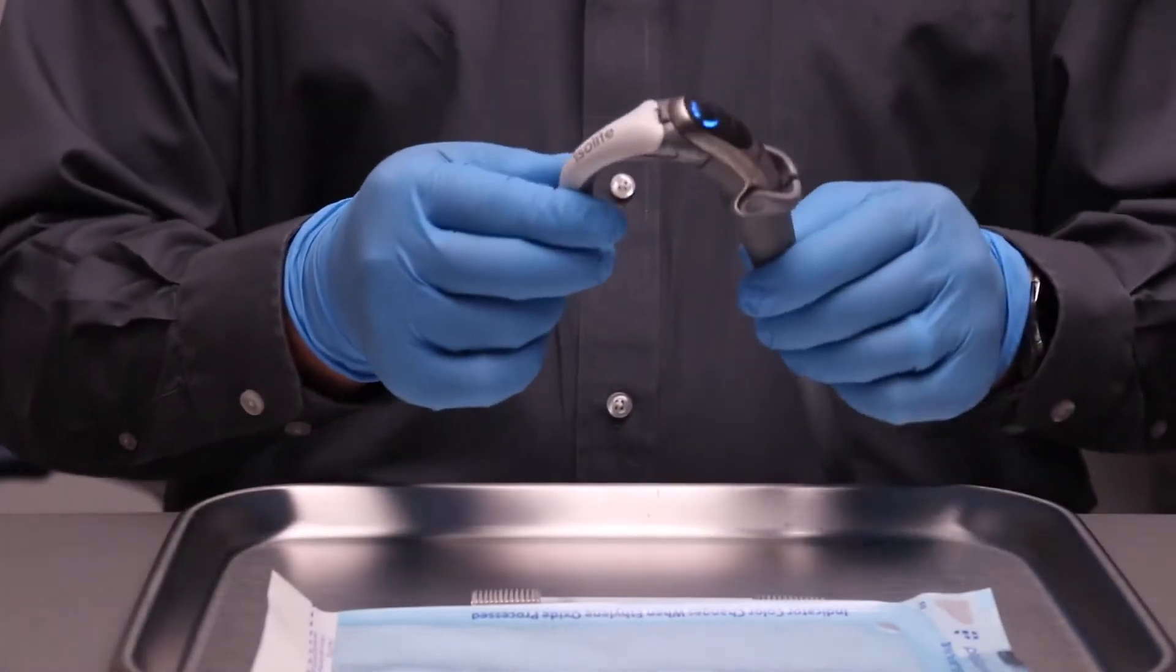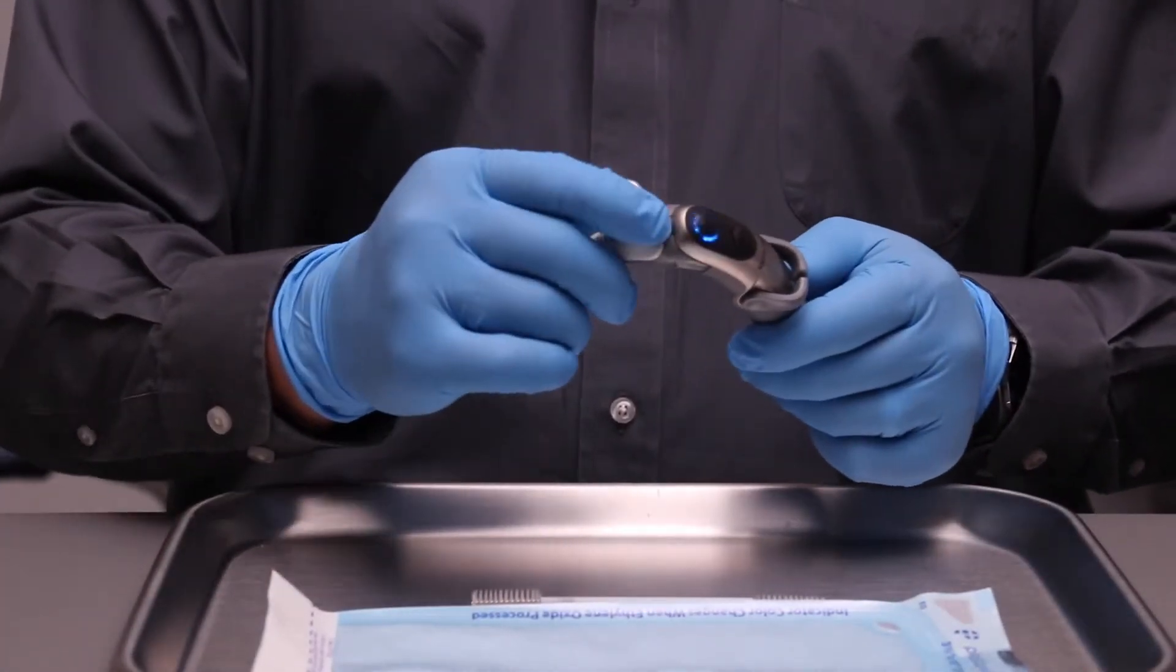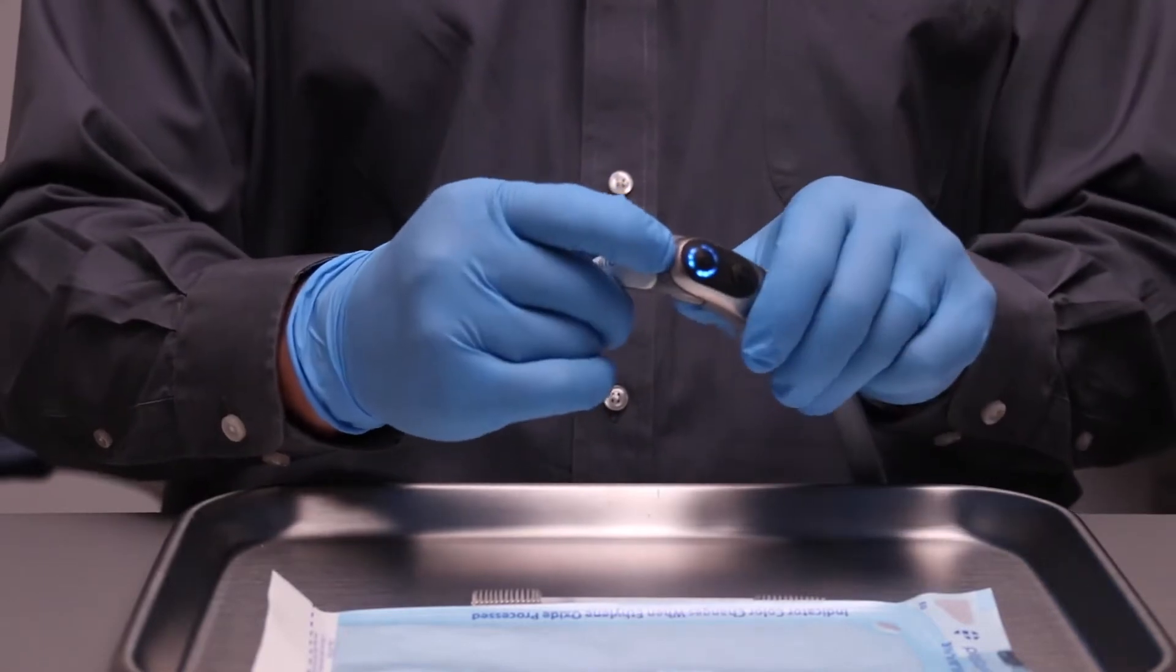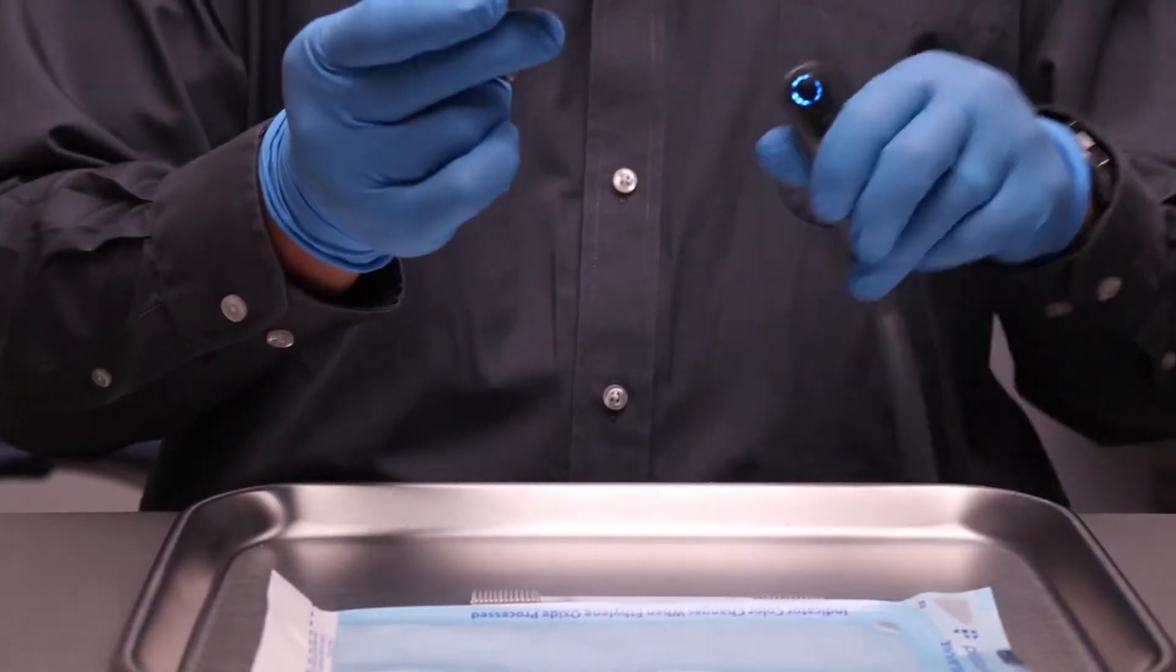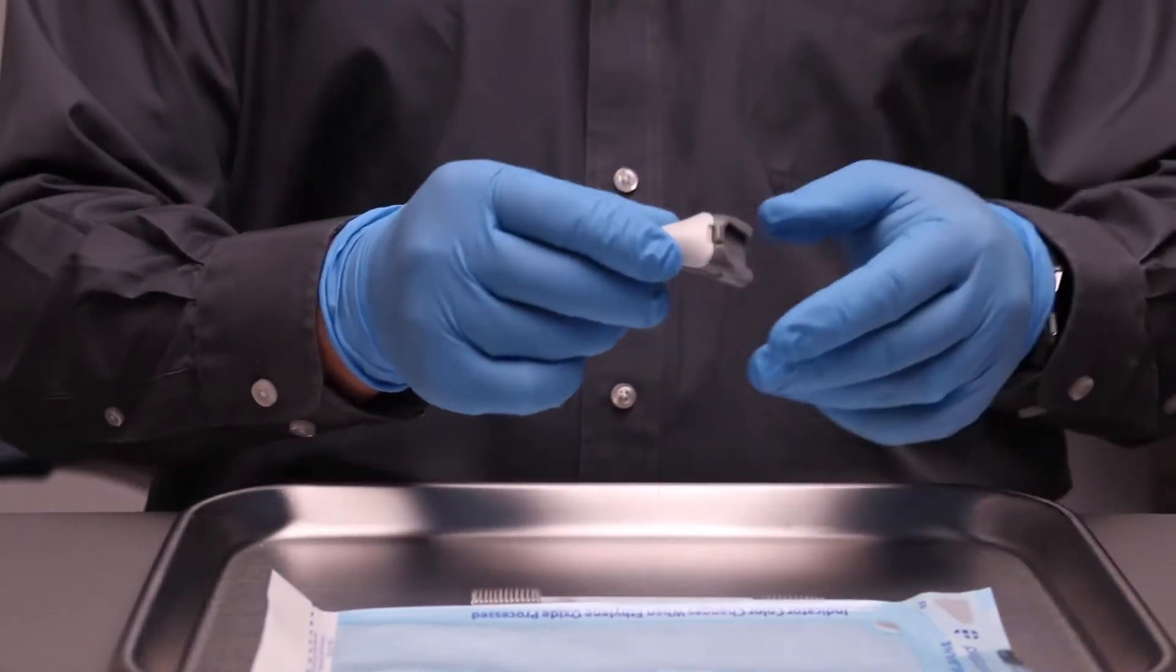You need to remove the anterior adapter by pressing on the button, sliding it forward. Now you can gain access to the insides to clean it. You need to clean it after every patient.